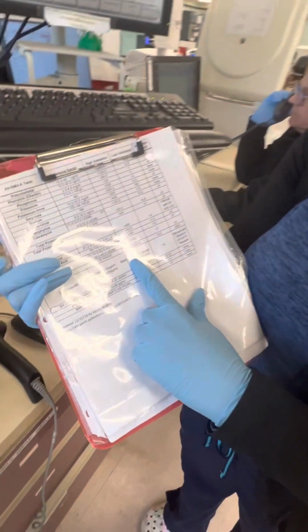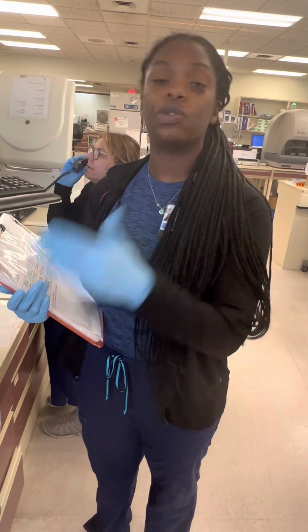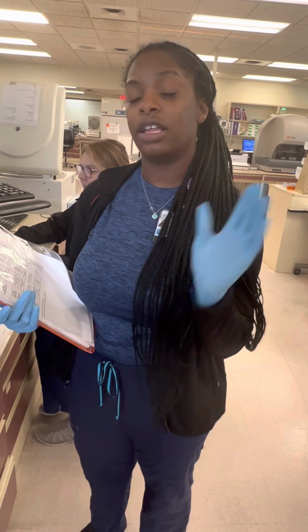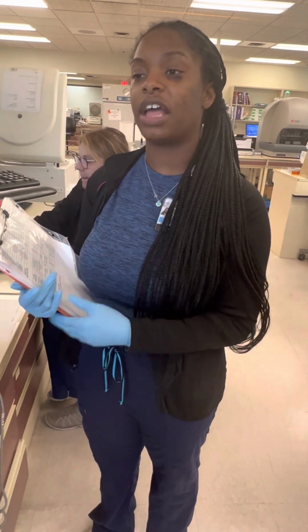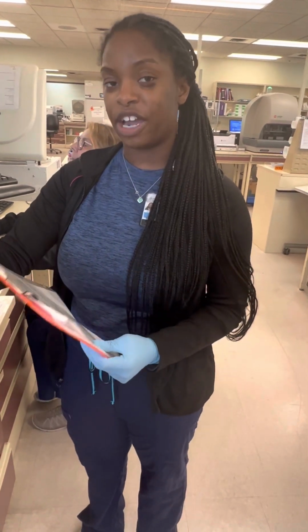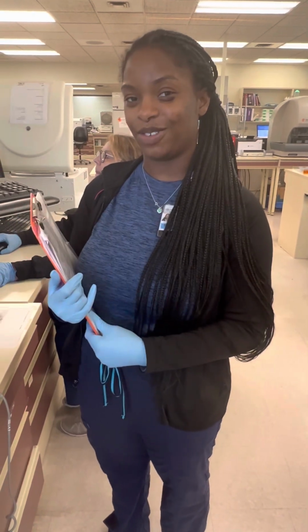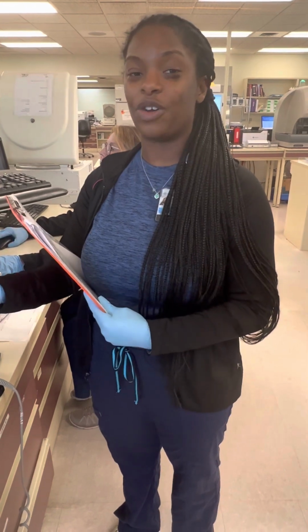If our sample happens to go over 2,700, then it automatically dilutes. But the instrument may register it as contaminated because it's so high. Therefore, QC must be run again to ensure that the sample itself is actually that high, that no contamination was seen, and that everything was run correctly, and that our instrument runs accurately and precisely. So there you have it. That is how our Beckman Coulter Access 2 monitors, finds, and reports out our antigen for troponin results.